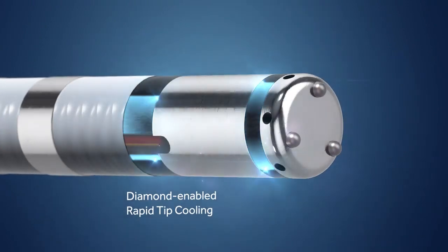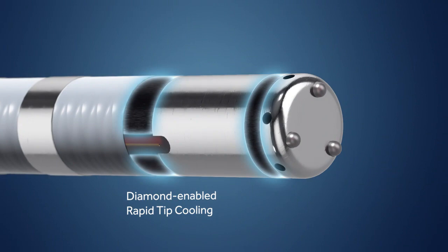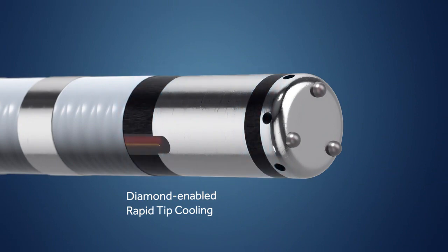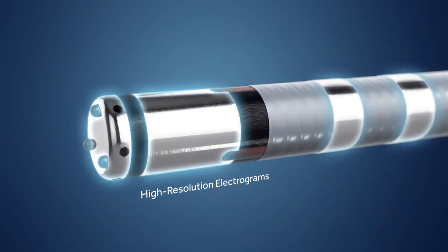This temperature control, coupled with diamond-enabled rapid tip cooling and localized high-resolution electrograms, allows for real-time assessment of lesion formation.